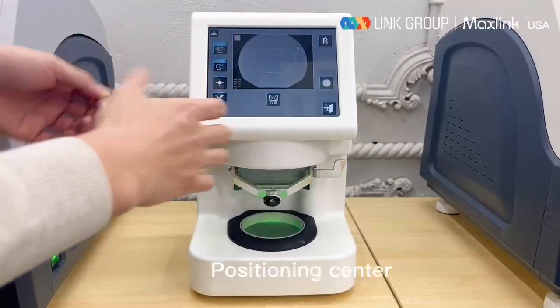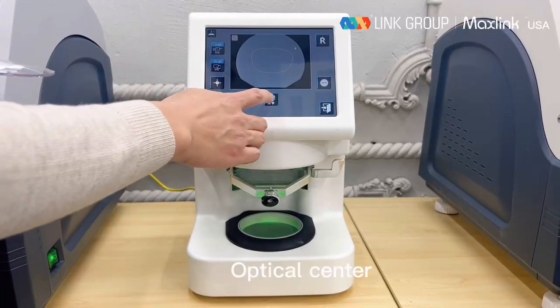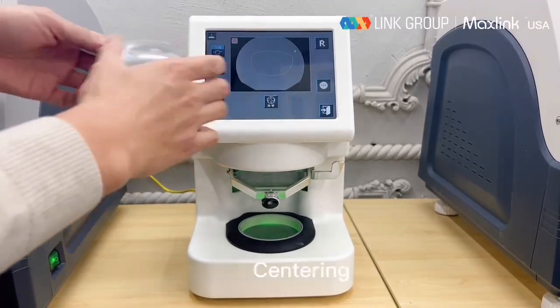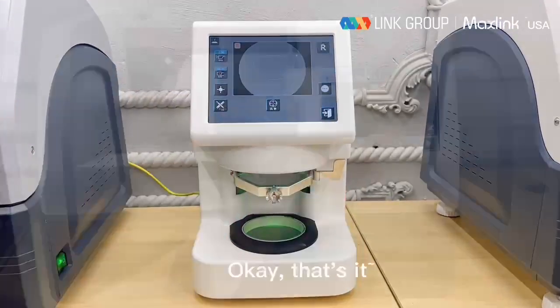Positioning center. Geometric center. Optical center. Centering. Okay, that's it.